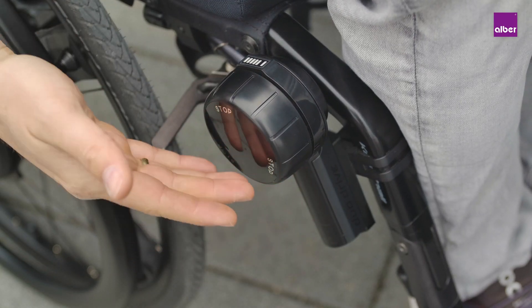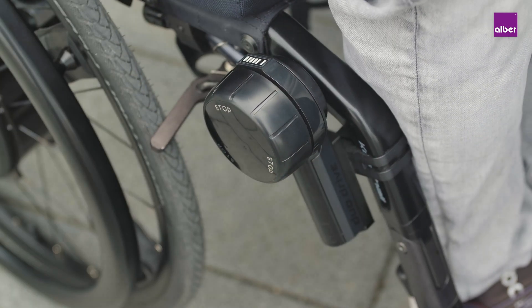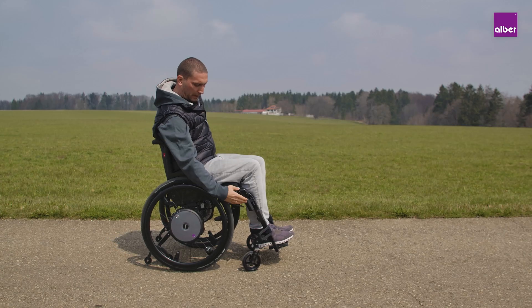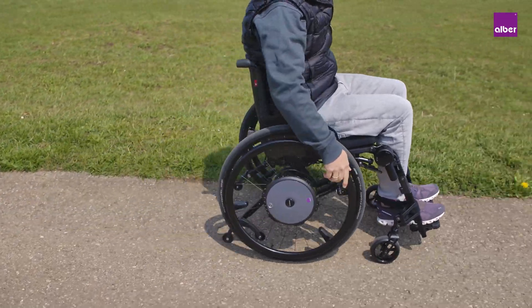This can be done with the Duo Drive control unit, which you can easily remove and insert back into the bracket on the footrest. For switching on the unit, press the speed dial knob. By turning the speed knob on the control unit you can activate cruise mode at any time, both from a standing position or while driving.